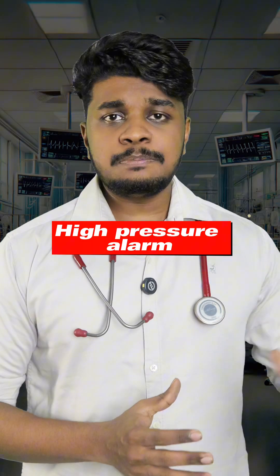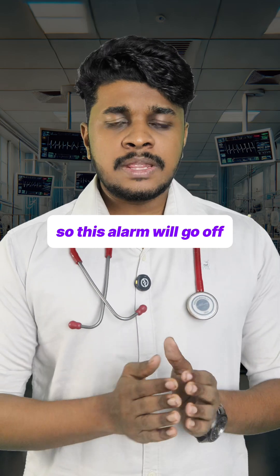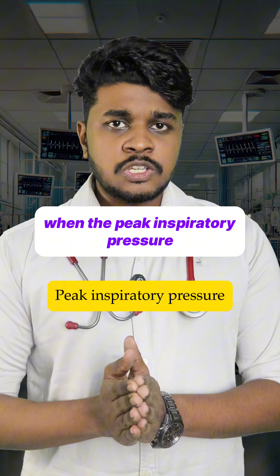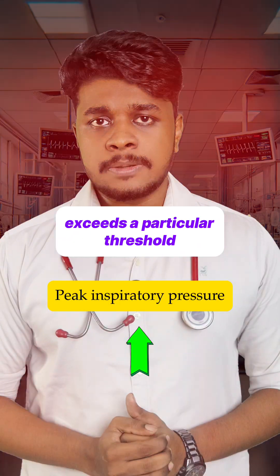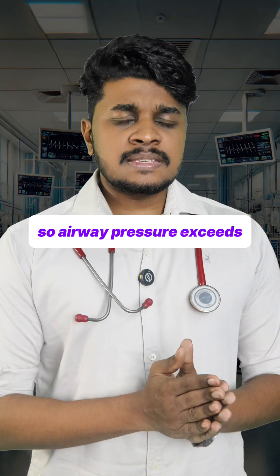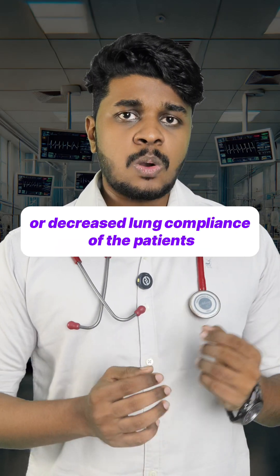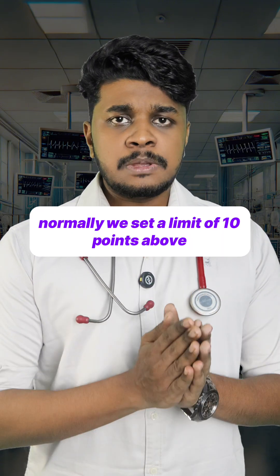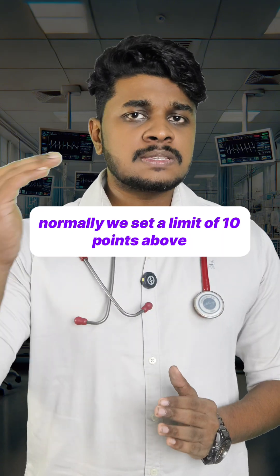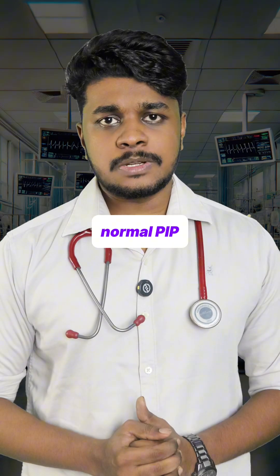The first one is the high pressure alarm. This alarm will go off when the peak inspiratory pressure exceeds a particular threshold — when there is increased airway resistance or decreased lung compliance of the patient. Normally we set a limit of 10 points above the normal peak inspiratory pressure.